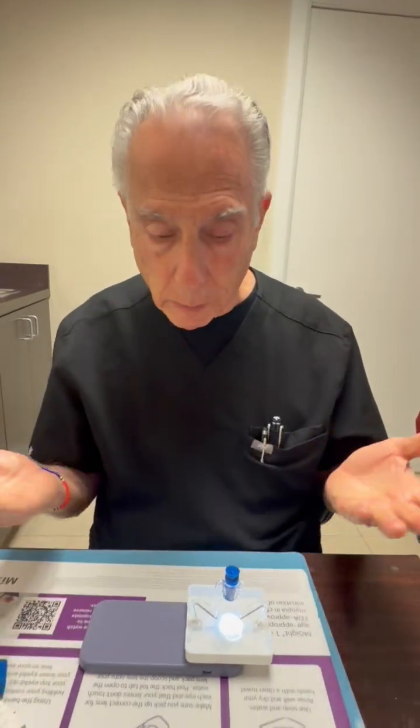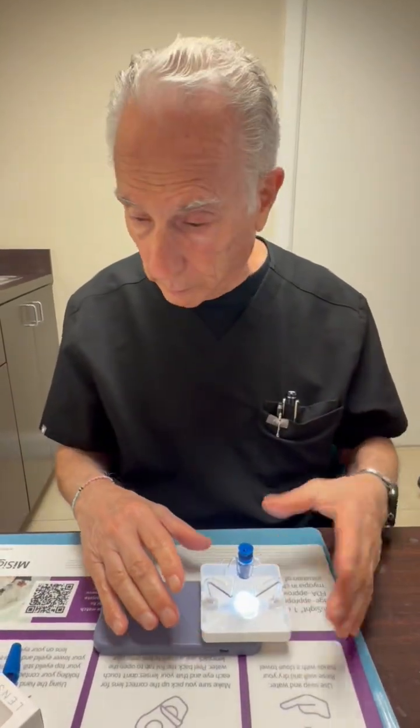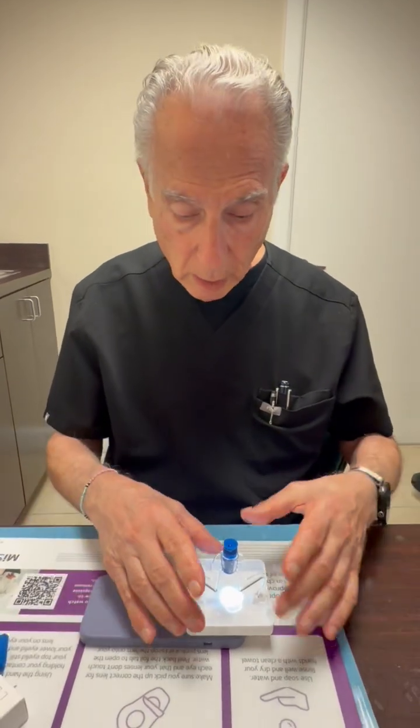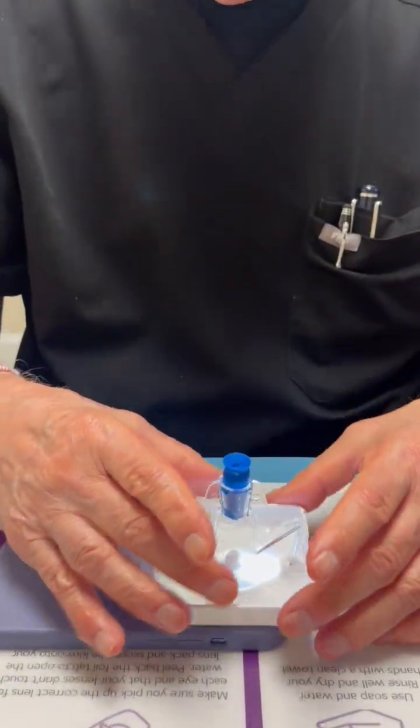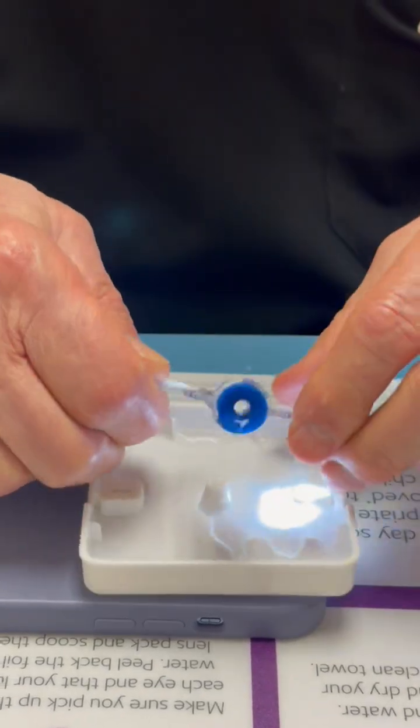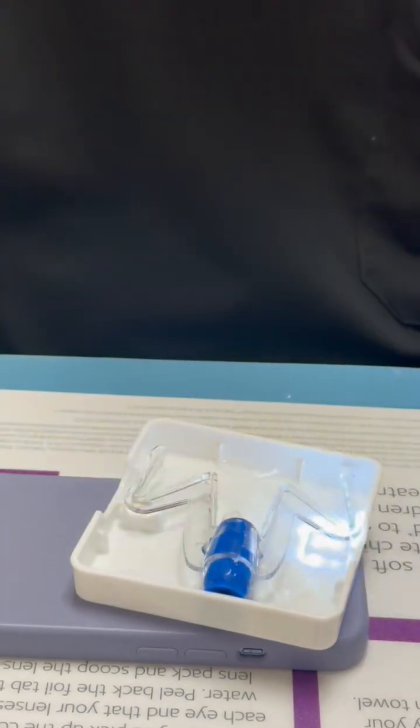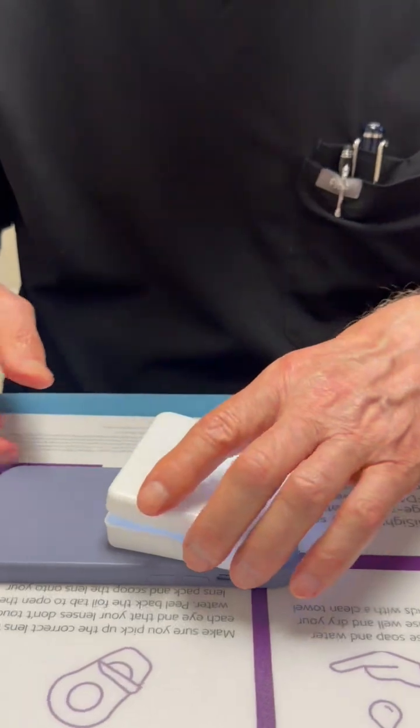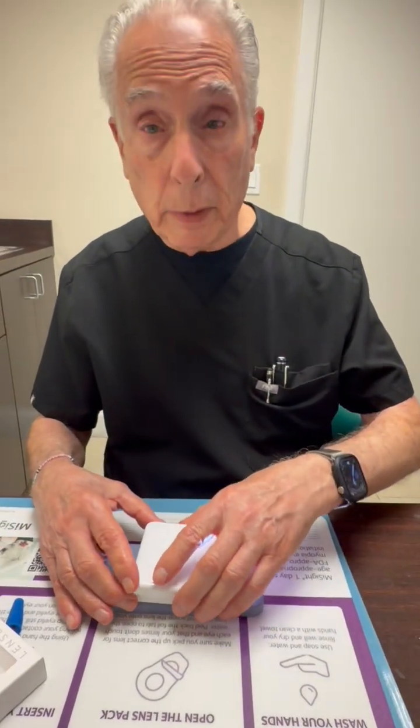Yeah, I wear scleral lenses. It's really very nice and easy to use. The saline runoff is right in the container. When you're through, it lifts off. You can put it in here. It has a top to it. And off you go. And it's very happy.